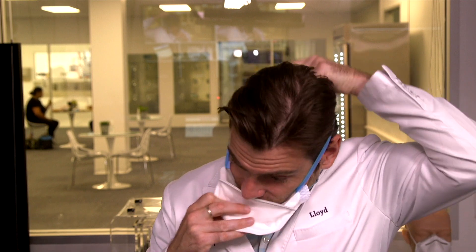After doing this like nine times, I can actually put this on — we'll see. It is a little bit difficult. This is the dumbest looking mask I've ever seen. Do not take this to prom, people. I just tried the Gearson mask, which is the duck style, and ACI — Advanced Concepts Innovations — all American-made duck style. But this one doesn't feel like it's fitting. Look at it — the nose wire is coming off. What the heck, Kim? It doesn't feel like it's on my head very well. Kim, you're messing up my hair. It looks like it's going to fall apart. This is not a good quality mask.